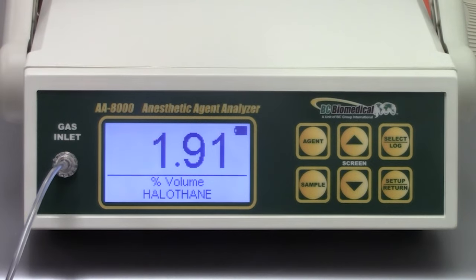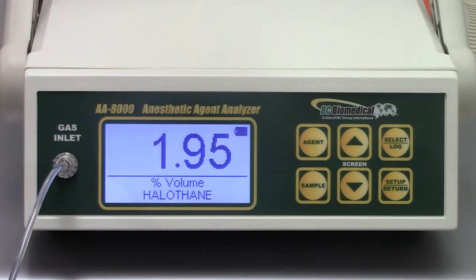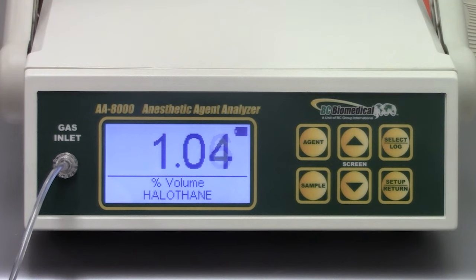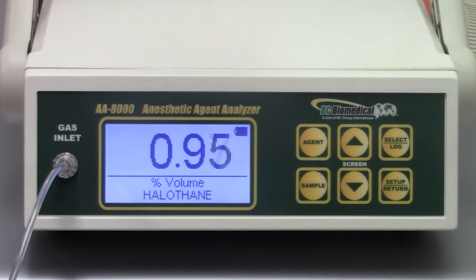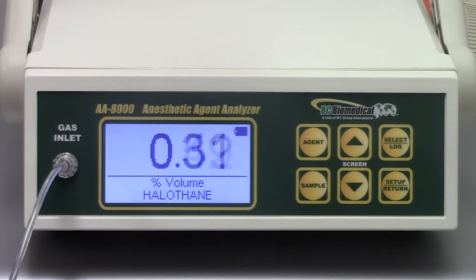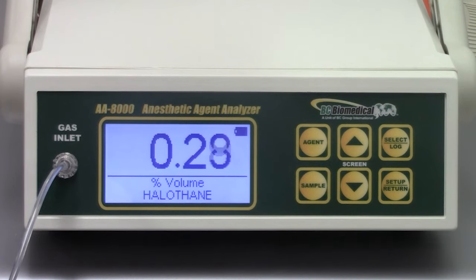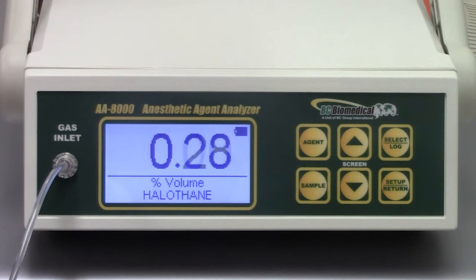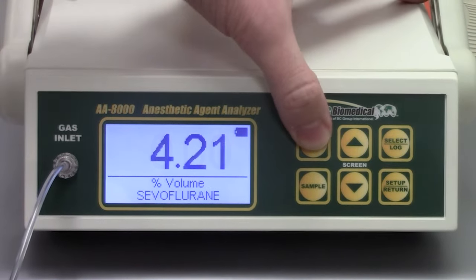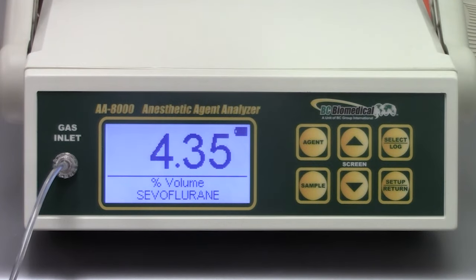The AA-8000 makes switching agents easy. For example, watch the reading zero out when we select Sevoflurane. Simply press agent to cycle through Sevoflurane to display your reading.